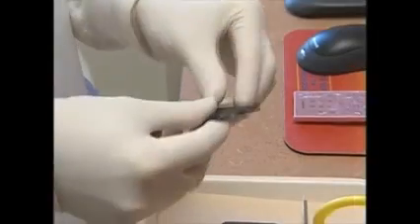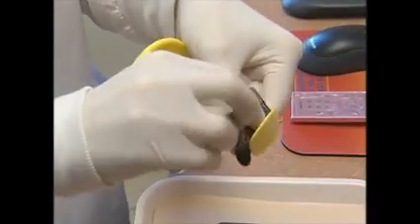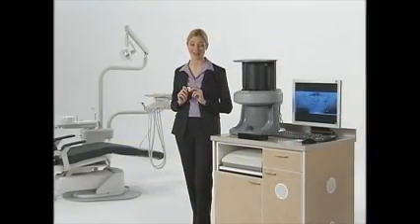Take an erased plate and put it into the barrier envelope, with the printed side of the plate visible through the transparent side of the envelope. Peel off the adhesive strip and use your finger to gently seal the envelope. Use the same infection control practices as before, like gloves and protective attire. And you can use all of your current film holders. Because the plate is thinner than film, with some holders you may need to fold the barrier envelope. If you use alligator clips, make sure you file down the teeth.